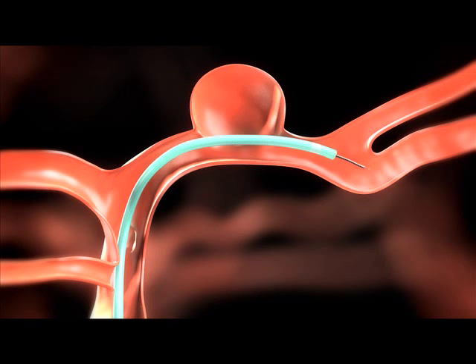Once the micro catheter is in place, remove the guide wire and tighten the RHV. With the aid of fluoroscopic monitoring, carefully advance the Solitaire AB to the desired position until its distal markers line up at the end of the micro catheter. To deploy the Solitaire AB, loosen the RHV, then carefully withdraw the micro catheter in the proximal direction.